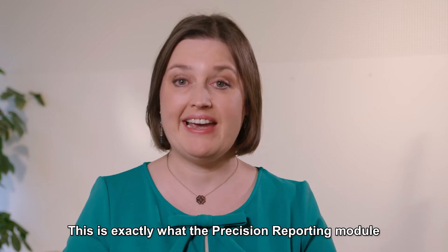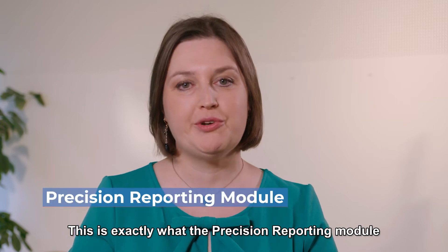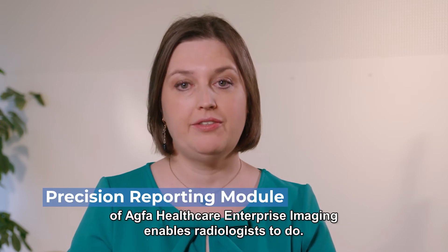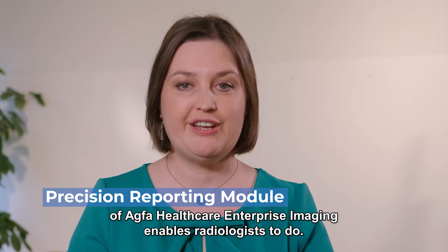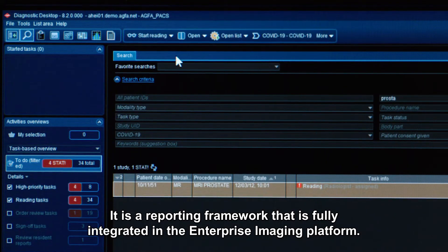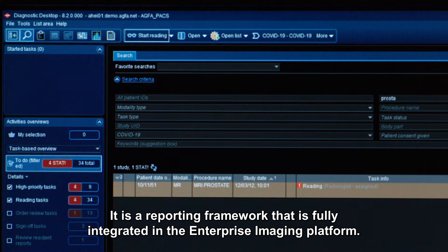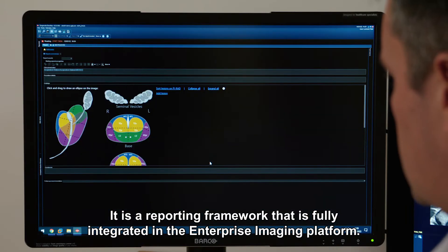This is exactly what the Precision Reporting module of Agfa Healthcare Enterprise Imaging enables radiologists to do. It is a reporting framework that is fully integrated in the Enterprise Imaging platform.